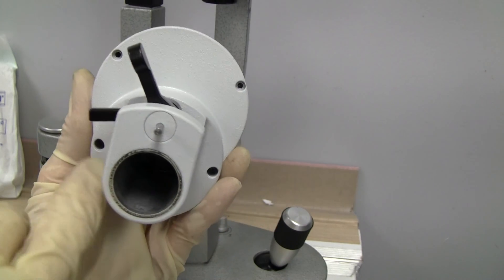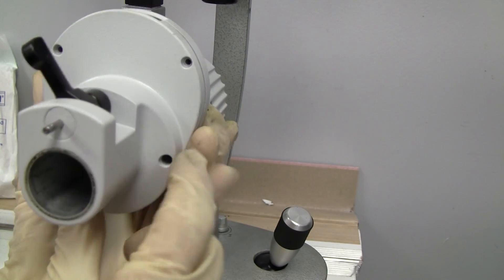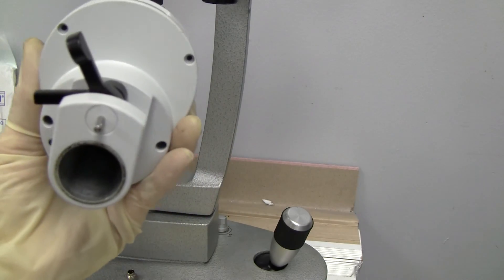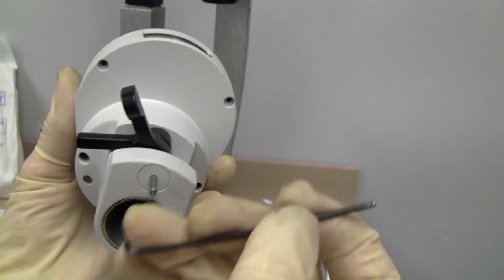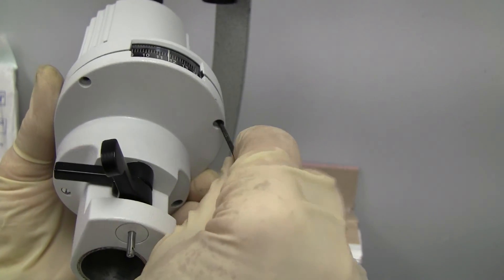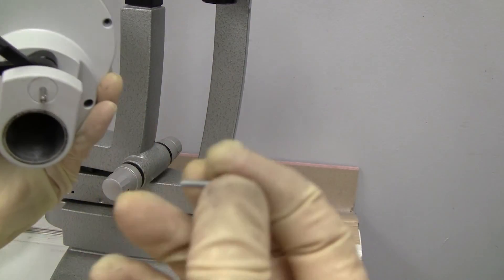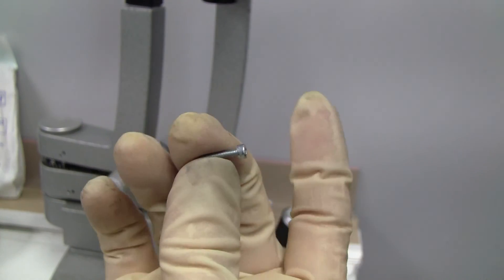You have four screws here and they are two millimeter Allen wrench screws. They look like this.